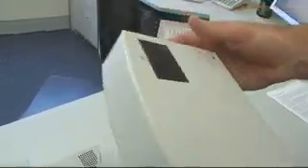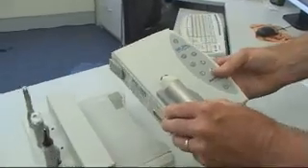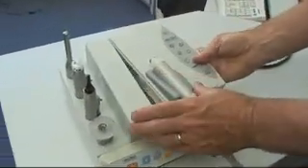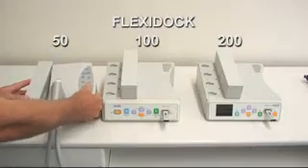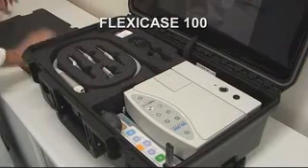On the other side we can see the built-in halogen lamp which enables the user to use the camera without an external light source. The camera is easily inserted into the docking station and ready for use. The Microvision camera can be used on a number of docking station options, including the imaging case as seen here.